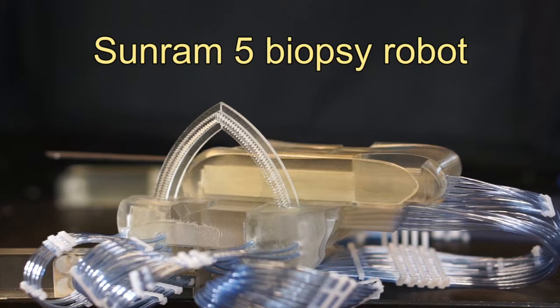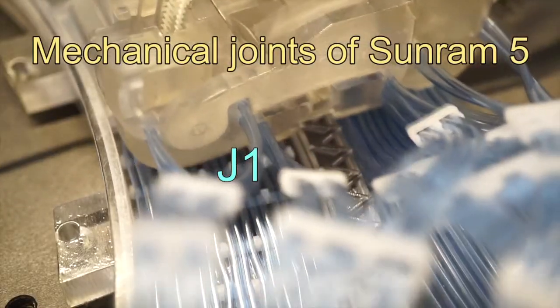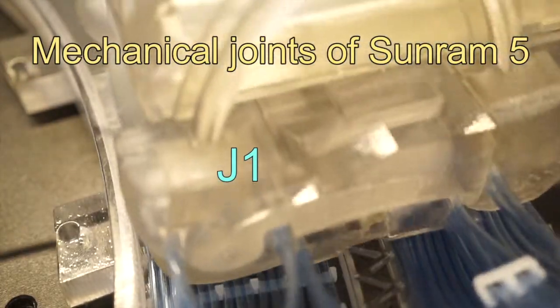SunRAM 5 has 6 joints plus 3 cylinders. These move the robot around along various axes at a variety of speeds.